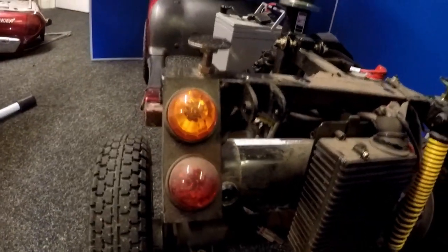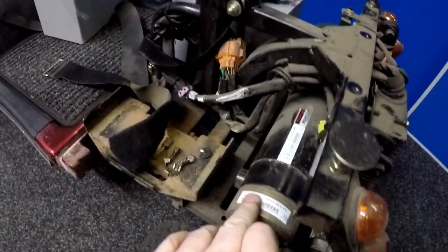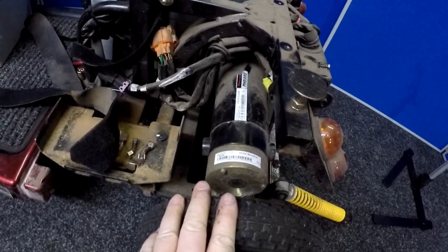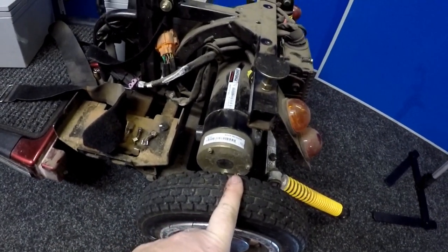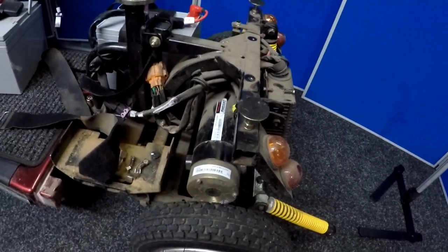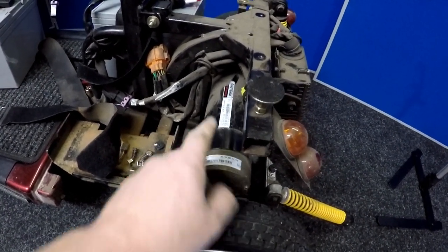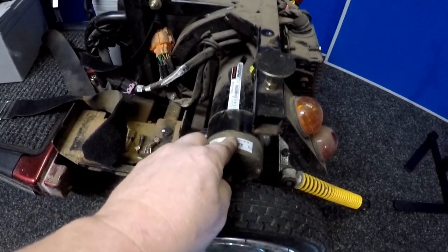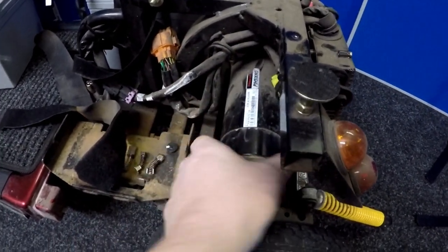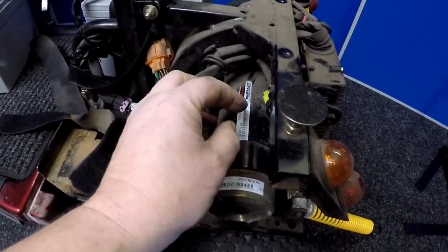So what we need to do to make sure this is running nice and smoothly is to physically remove this motor, the electric brake, the complete motor off and dismantle it. We also need to remove the wheel to make it easier to take this off. Before we do anything, the important thing is to mark everything with a felt tip pen — mark along here, mark along there, mark at the back as well. So when we get to put this back, we ensure that this is pointing in the right direction and we'll dismantle the motor and put it all back together exactly the same way as when we took it off.